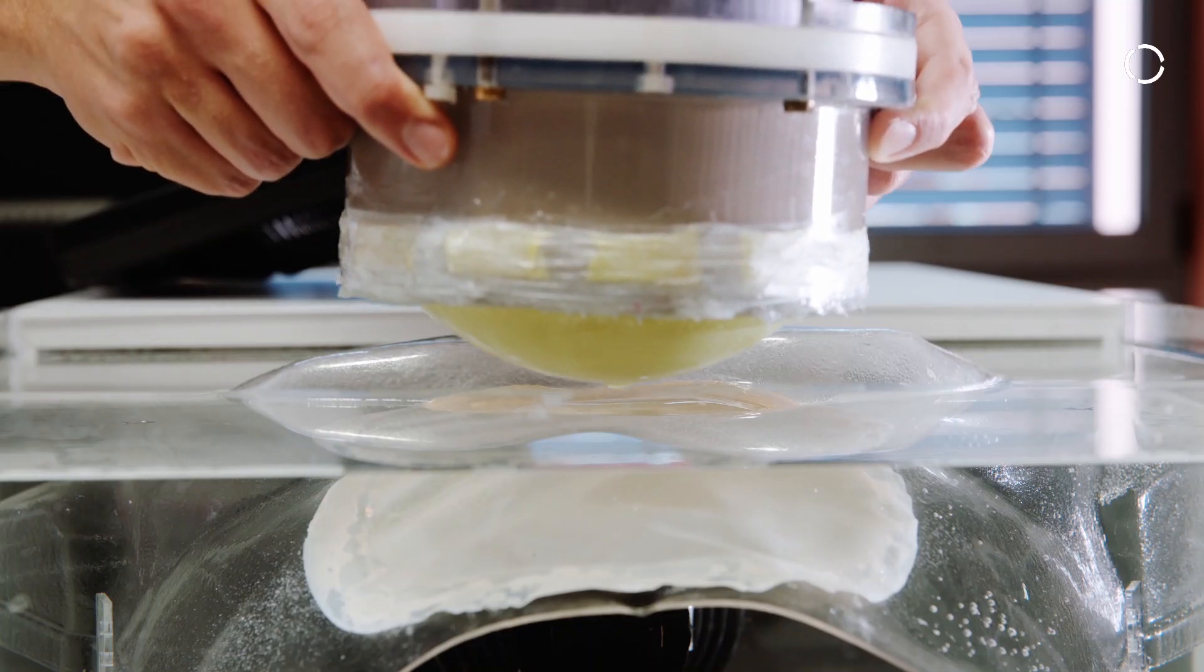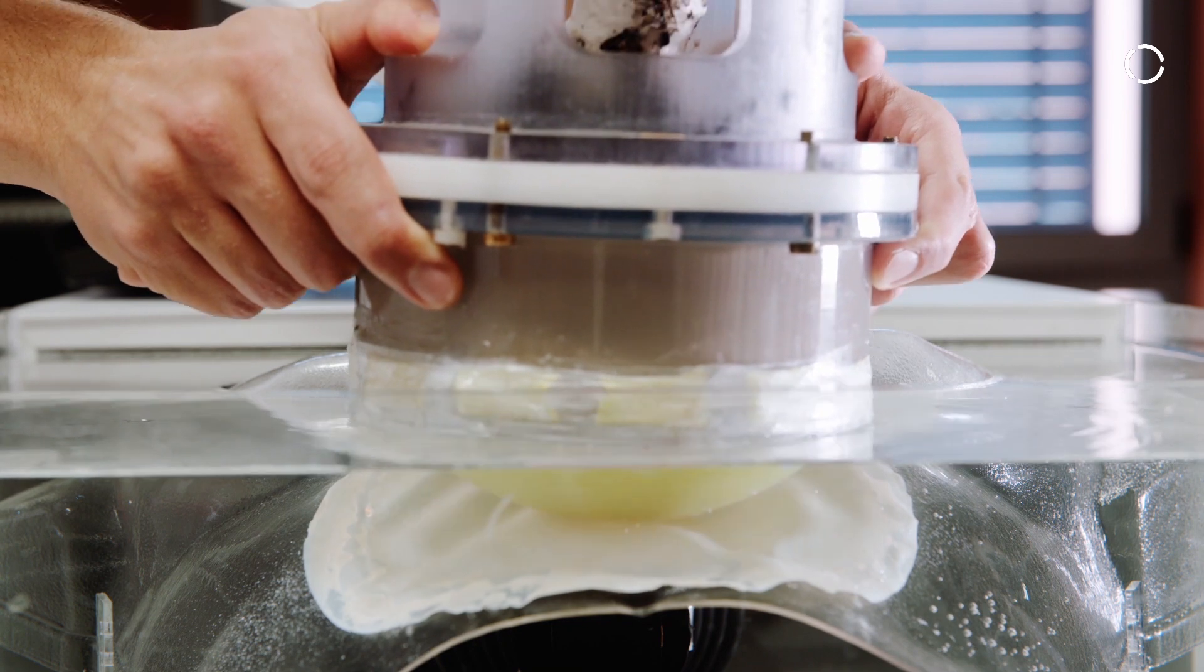Such a combination allows to perform a treatment which is precise thanks to robotics and non-invasive thanks to ultrasound. With respect to the available surgical techniques, focused ultrasound has all the features to be the ideal treatment.